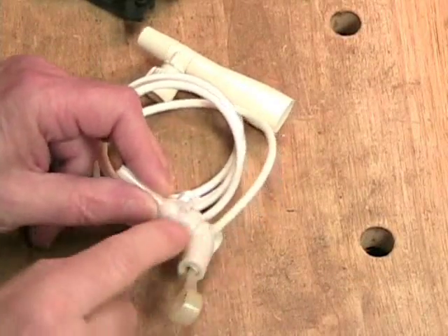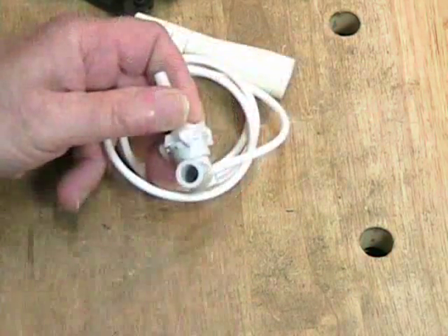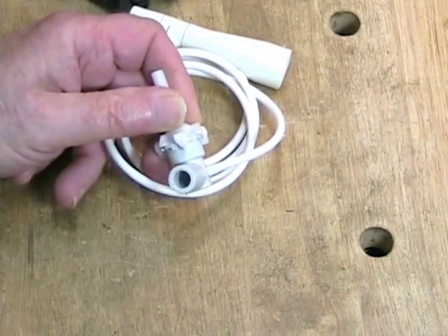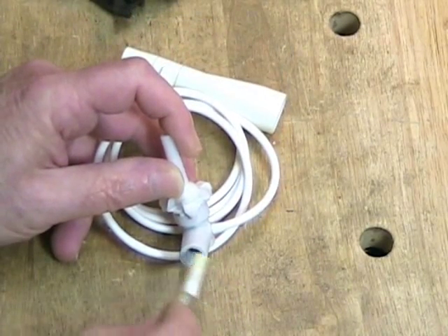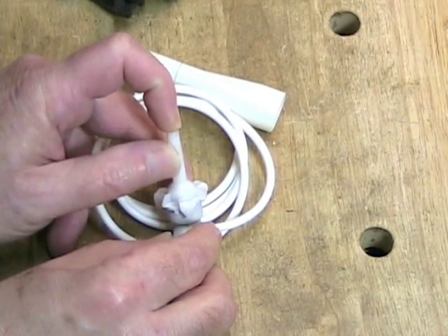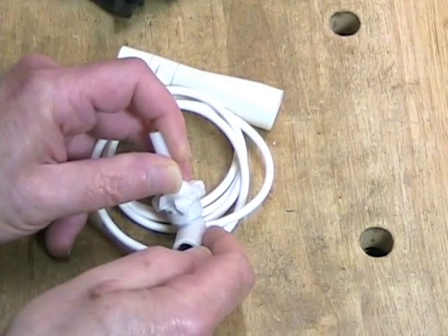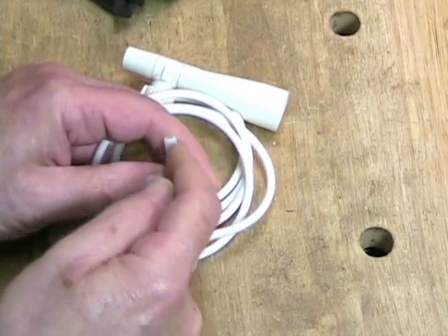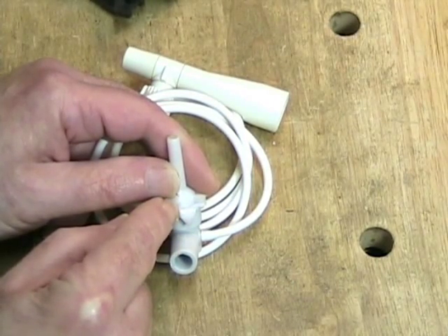Here is the pump head, here is the piston housing, and here is the piston, and the piston will slide right out. The inside of the piston chamber is made of a very smooth plastic, but it's very tight with the piston. As this piston goes in and out, it pulls water through the intake valve — this tube — and fills the chamber. Then when it goes into the second part of the stroke, it pushes it out through this tube. Why doesn't it push water back up into the reservoir? The key is in the pump head itself, so we'll take a look at that now.